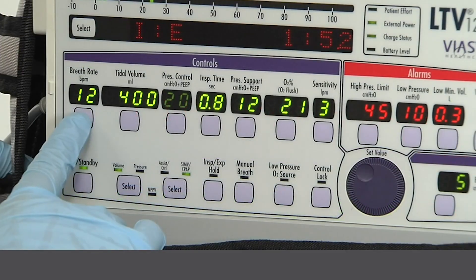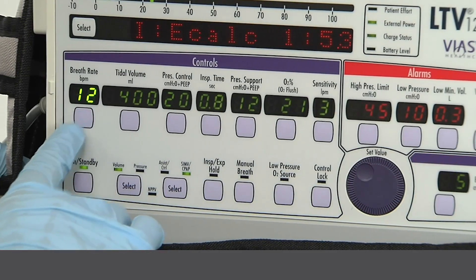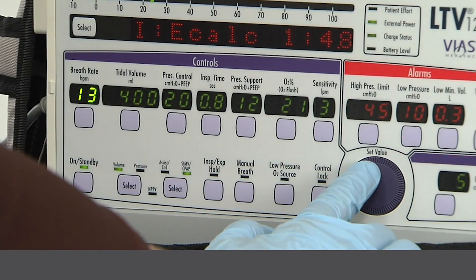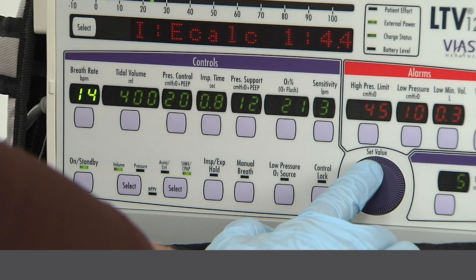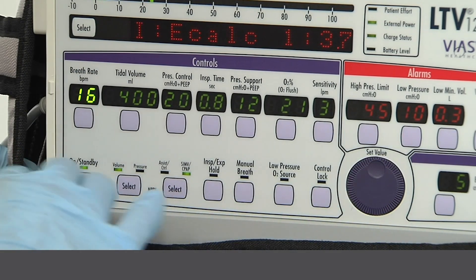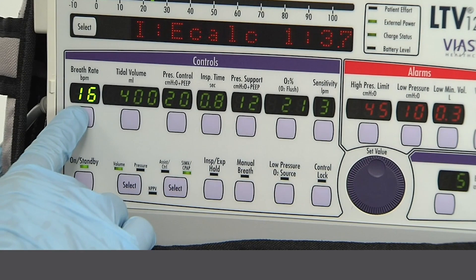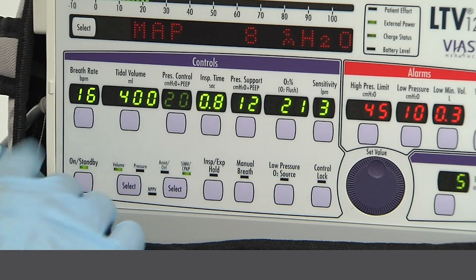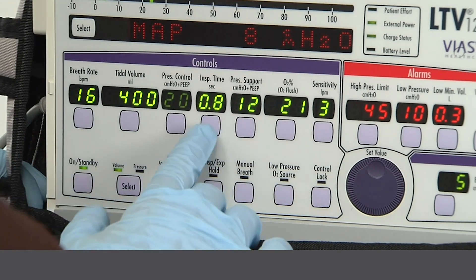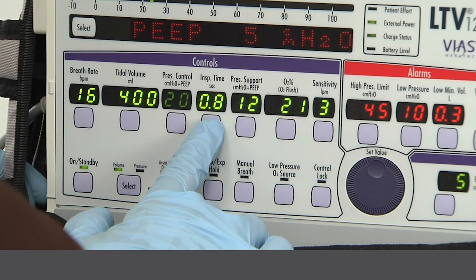Notice that when we adjust the breath rate, the IE ratio is displayed. When we adjust the inspiratory time, the calculated peak flow rate is displayed.